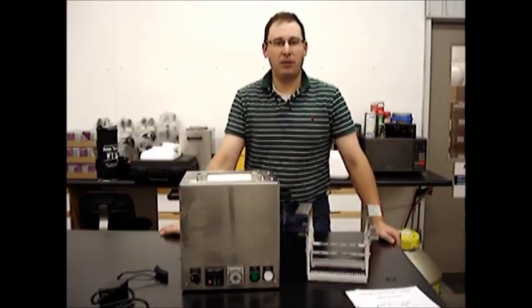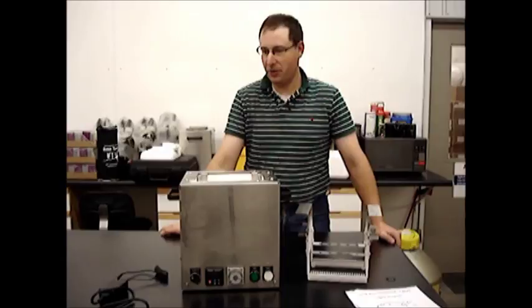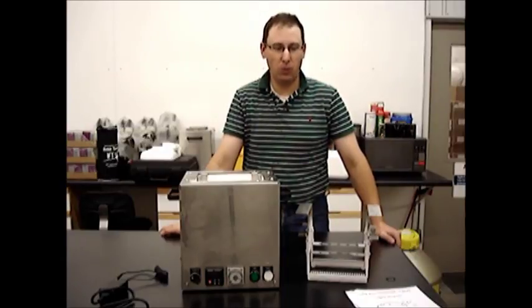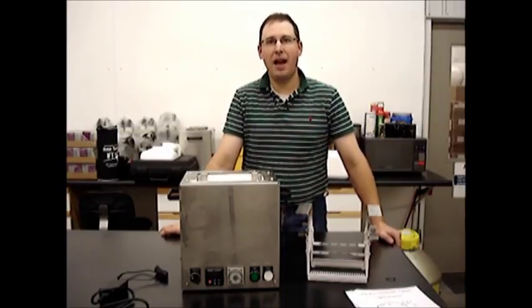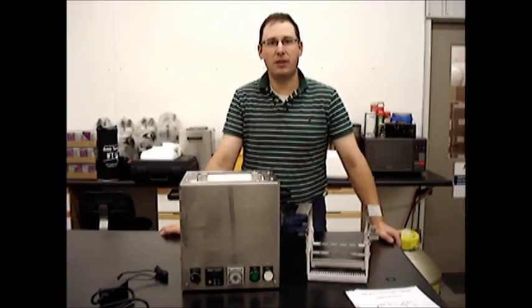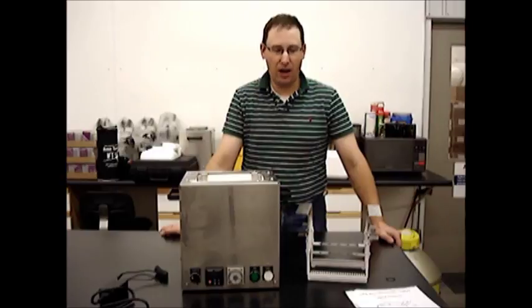We have these units available in inventory for purchase immediately and we do ship worldwide. You can also order the system online through our website which is www.agtechinc.com.